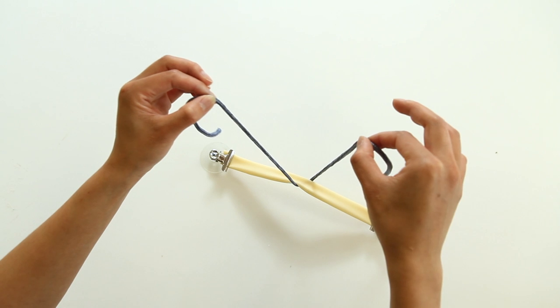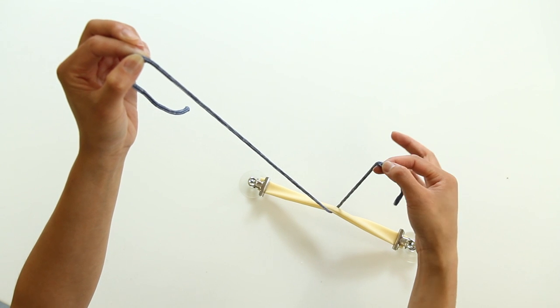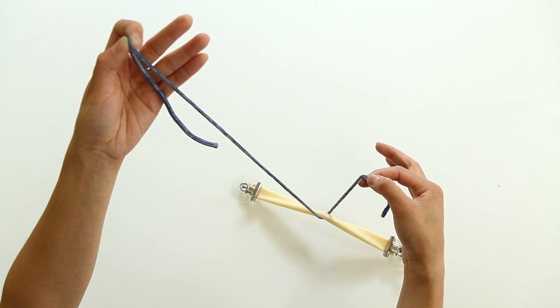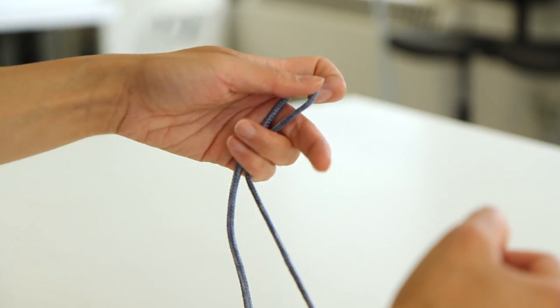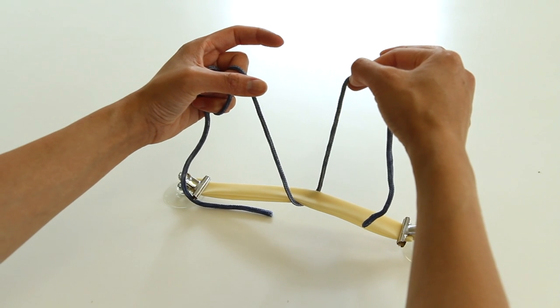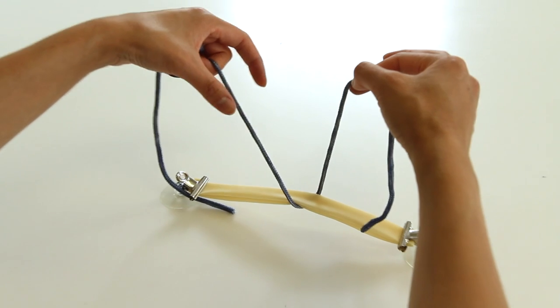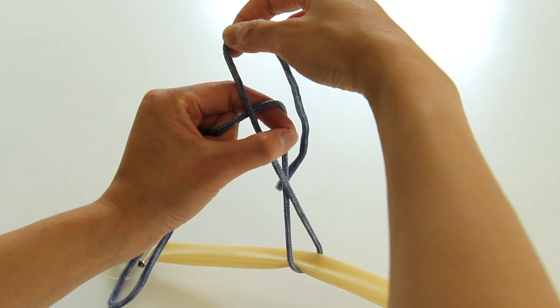The first knot we will teach is the two-handed knot, formed with active participation from both hands. We begin by teaching how to lay the knot down as a half hitch. Begin by using gathering and sliding maneuvers to obtain the proper working distance, being sure to avoid an excessively long tail held in the dominant hand. Lock the suture with the non-dominant hand to form the post, leaving the thumb and forefinger free to participate in forming the knot. Form a C with the thumb and forefinger of the non-dominant hand. To lead with the forefinger, hook the post over the forefinger, move the tail between the thumb and forefinger, then pinch the thumb and forefinger together.